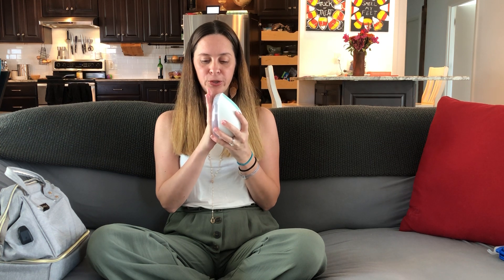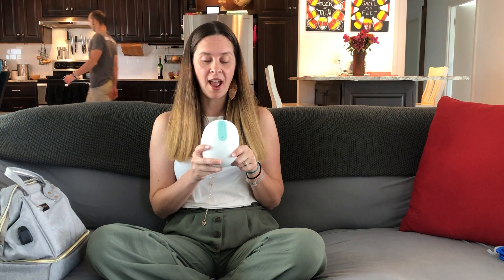When I talk about the Willow breast pump, it's that it's hands-free. It looks like this — fully put together, this is as much as it is. It slips right into your shirt and it latches on. When you put it on and press start, it's going to create a latch on your boob, which is awesome because most other breast pumps require a special bra to hold it on. You can slip this into any bra that you have, and it's going to create that latch and then continue sucking.